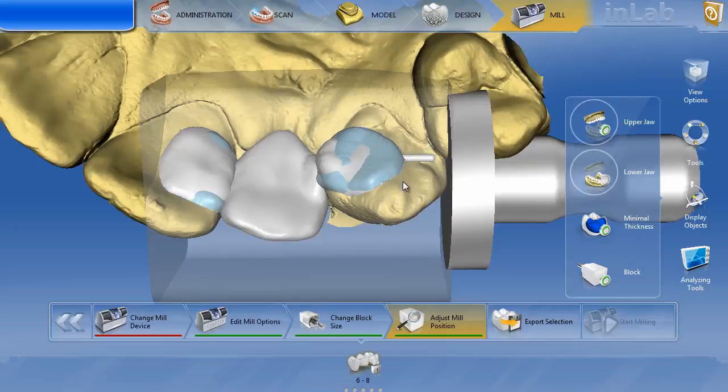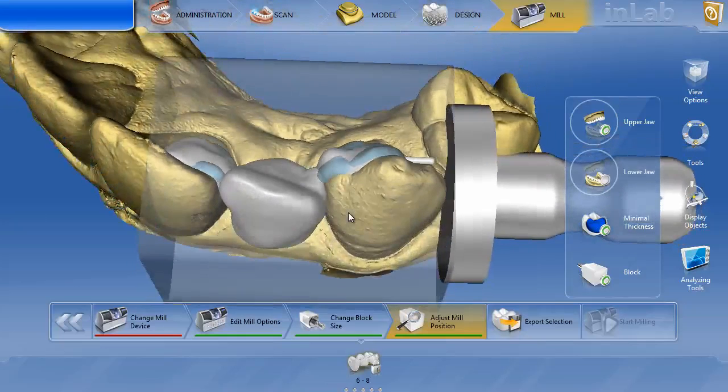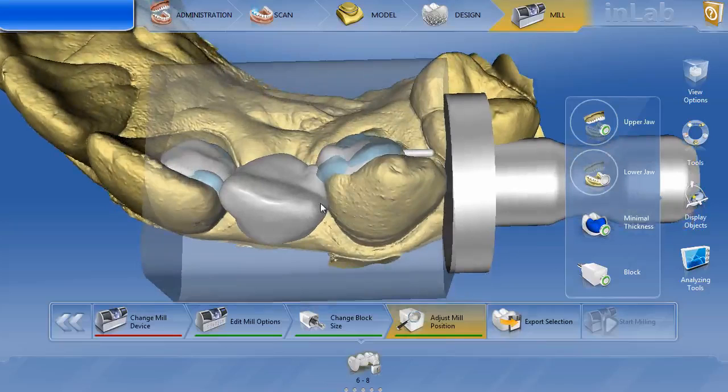This tooth is unprepped on tooth number six, so if you were doing that, an easy way to get this to fit would be to simply slice this wing a little bit shorter. You remove the binding area and you've still got a nice fitting wing. But let's go ahead and start from scratch and look at what was done here and how to improve it.